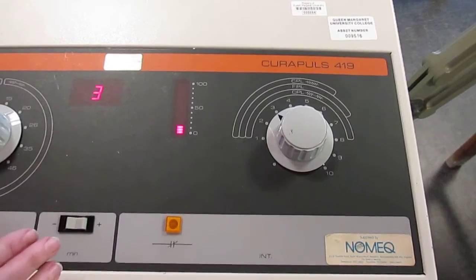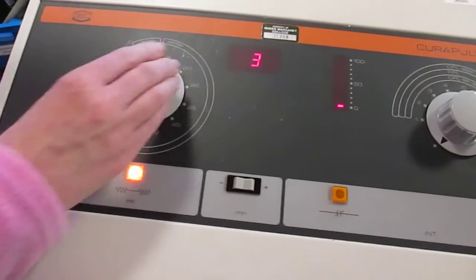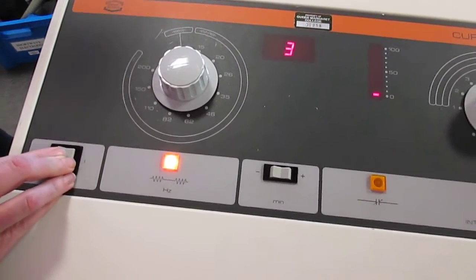Once the treatment has finished, always turn the dials back to 0 and turn the machine off.